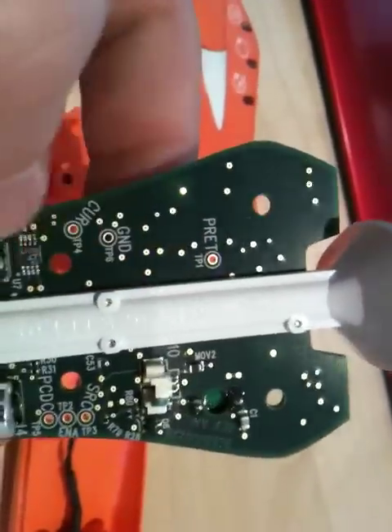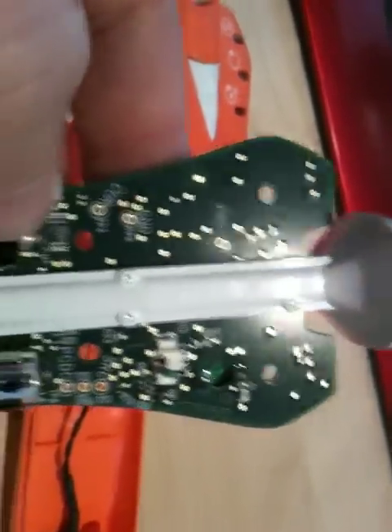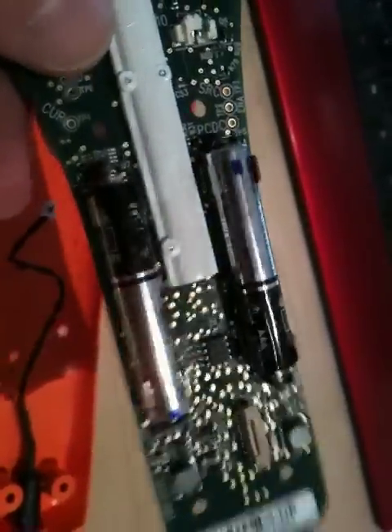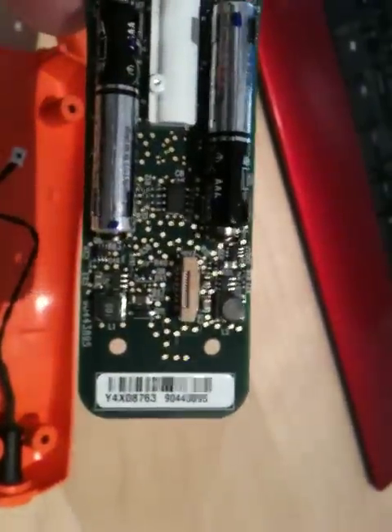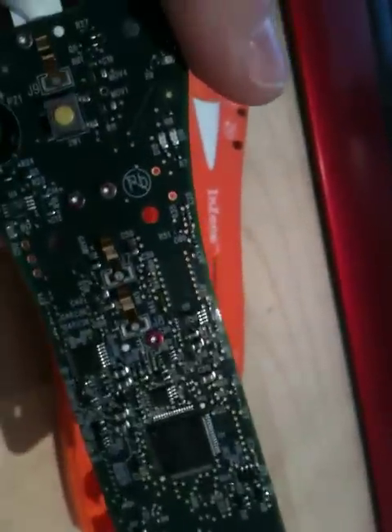There are a few test points here. One presumably means ground, another presumably means current — no idea what the others mean. There's also a little connector for the second electrode. One of these devices costs probably around £400, and it's a single-use device. The batteries probably hold enough charge for 30 or so coils, which is more than sufficient for the vast majority of procedures.